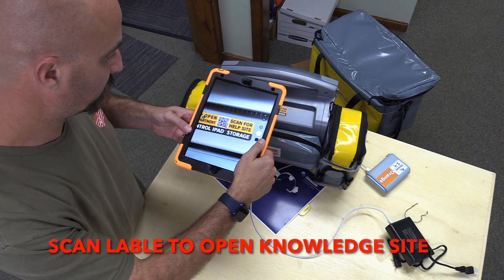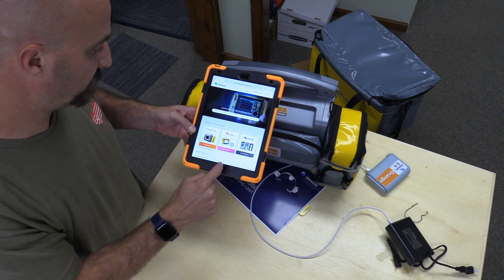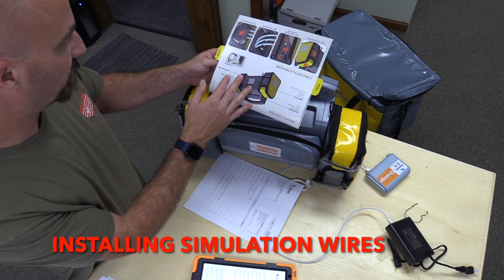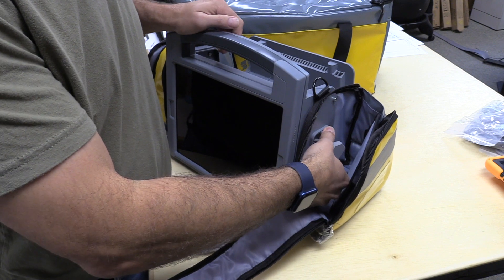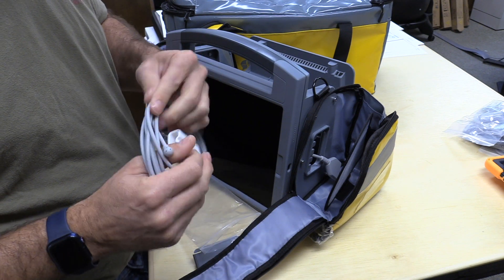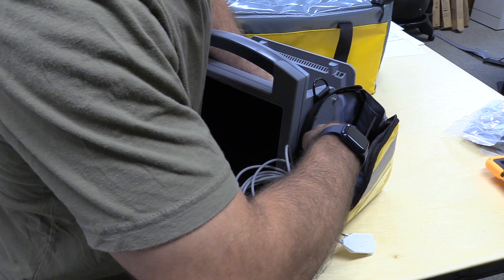Scanning the QR code on the back cover of the case will bring you to our Knowledge site, which contains instructions for use of Reality 360. You can also view other videos on our YouTube channel, iSimulate Education. You can choose to place the simulation leads in any compartment on the monitor case. By following the directions on the supplied insert, you can connect lead sets into the case on both sides. Simply pop the clamp into the center of the compartment, select the lead wires you want placed, set the distal end of the wires into the little teeth on the side of the clamp, and replace the clamp clip into the case to hold the wires taut.